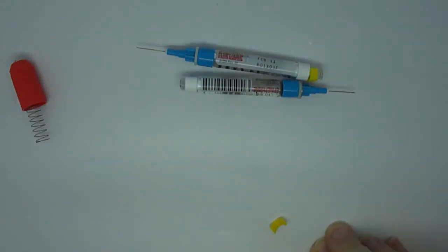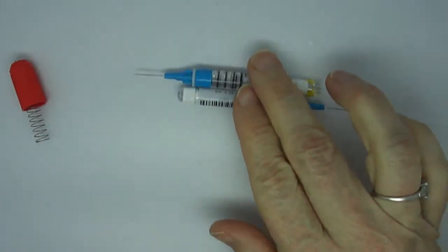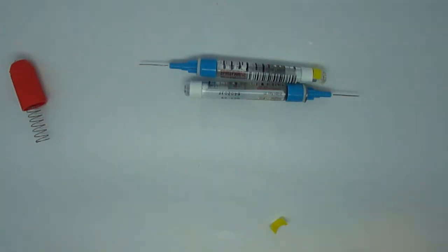So that's it. That is the design of this fairly unique and interesting way of carrying extra epinephrine doses within one device. Kind of an interesting and novel idea. Be well, be safe, and carry your epinephrine.